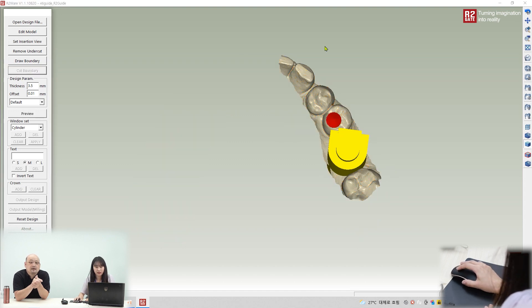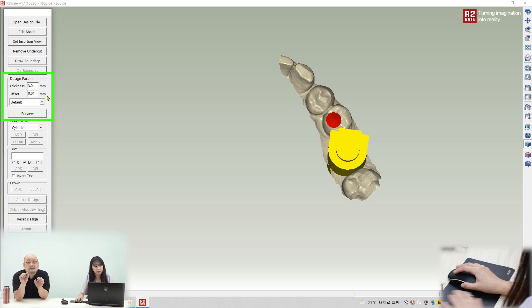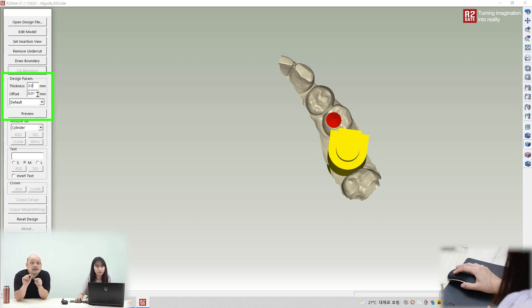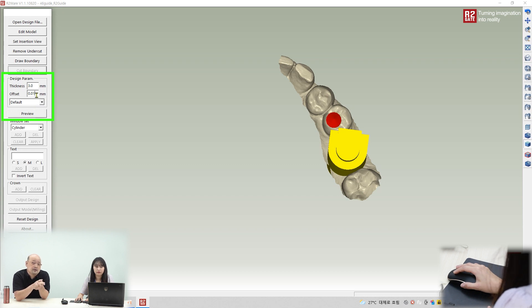Cut the boundary — click. Don't delete all the other areas. Then set the thickness: 3.0mm. That thickness is the guide thickness. The offset is 0.01mm — if you make the offset bigger, the guide will be looser on the model. So our basic offset value of 0.01mm normally works fine.